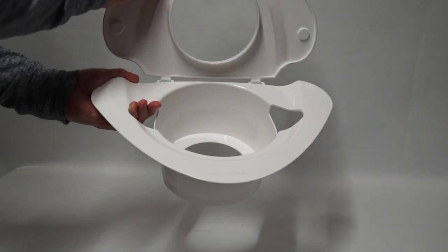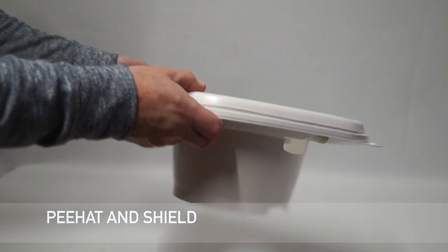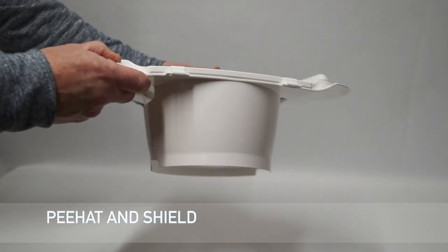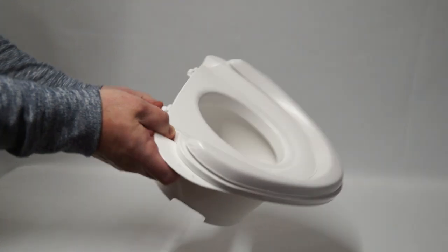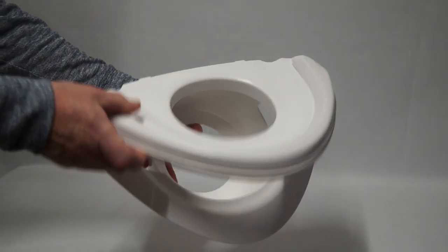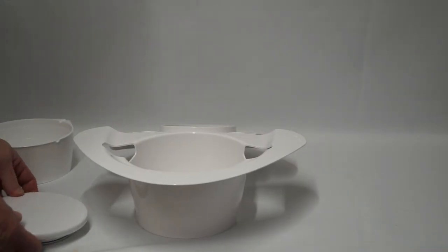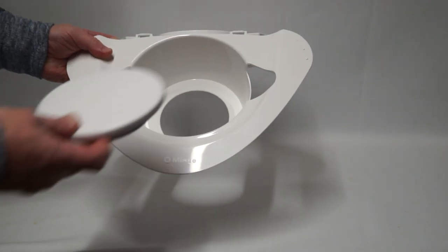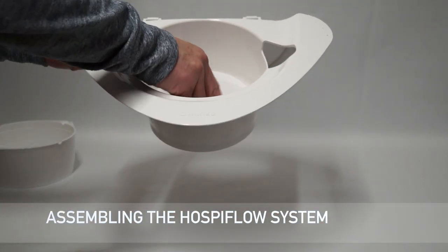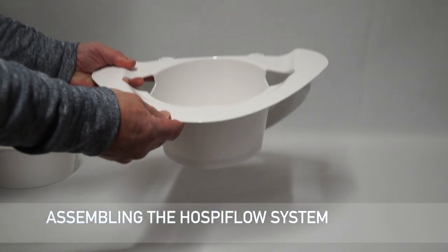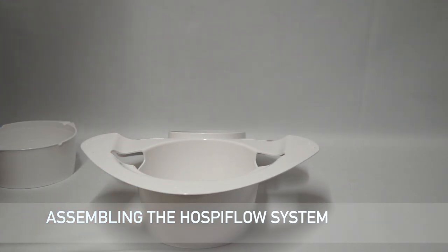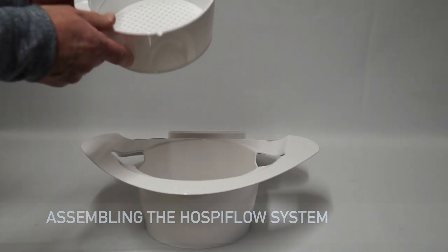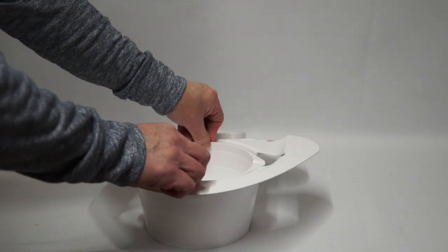Here you can see the P-Hat and shield. This assembly will fit onto the top of any toilet in the hospital or at home. The flow meter is placed inside the P-Hat and then the HospiFlow cup is located on top of the flow meter. Then, the whole assembly is placed onto the toilet and it is ready for use.